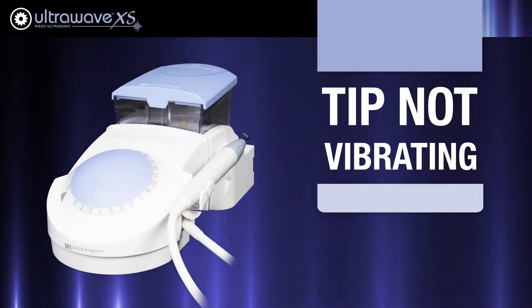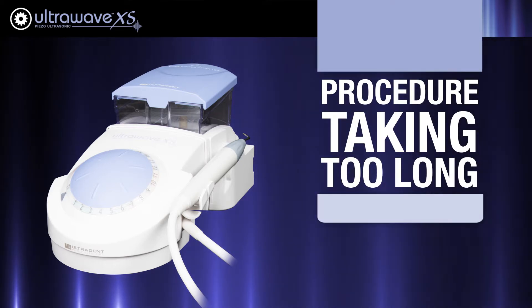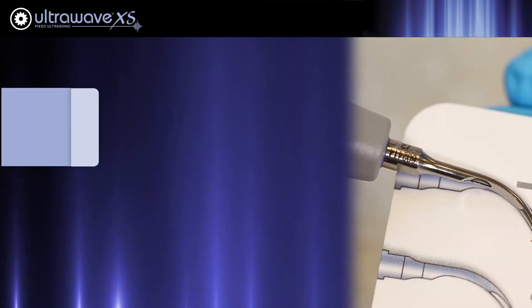If you find that your tip is not vibrating at the expected frequency or that the treatment is taking longer than expected, the cause may be a worn or damaged tip.